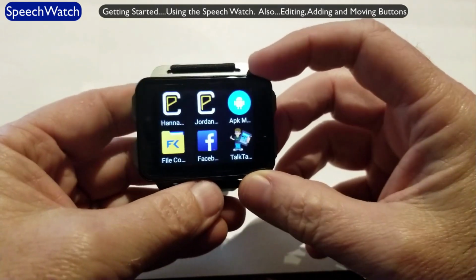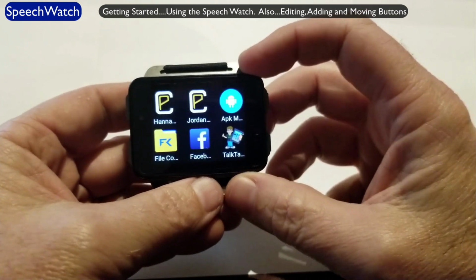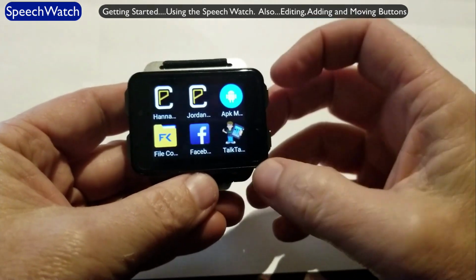In this video, I'd like to show you how to use the Talk tablet for communication and speech, as well as how to edit a button, how to add buttons, and how to move buttons. So let's just start by showing you how you can use it for communication.